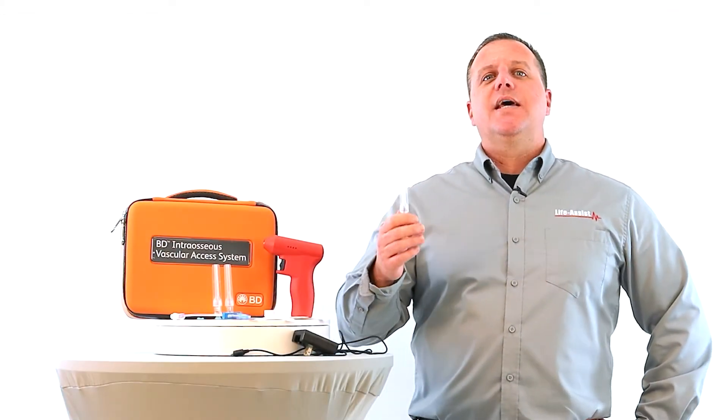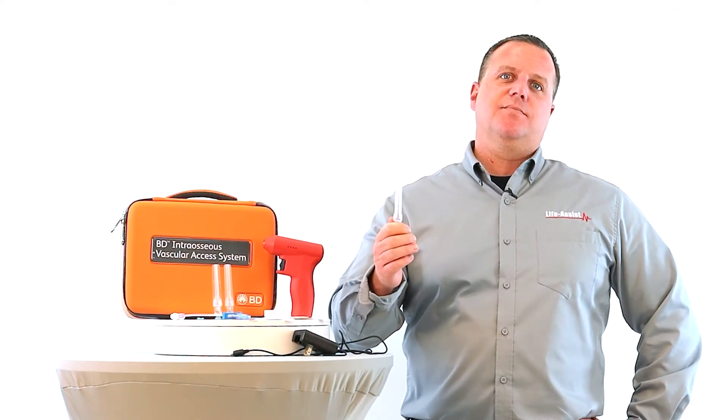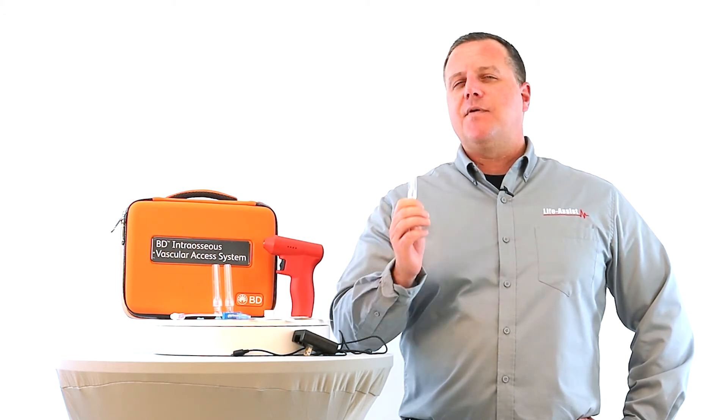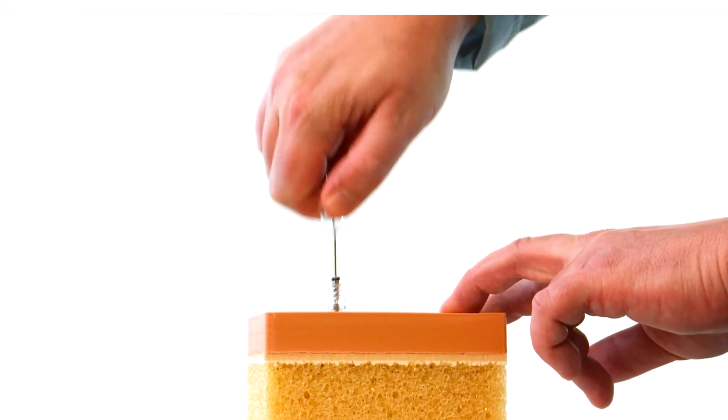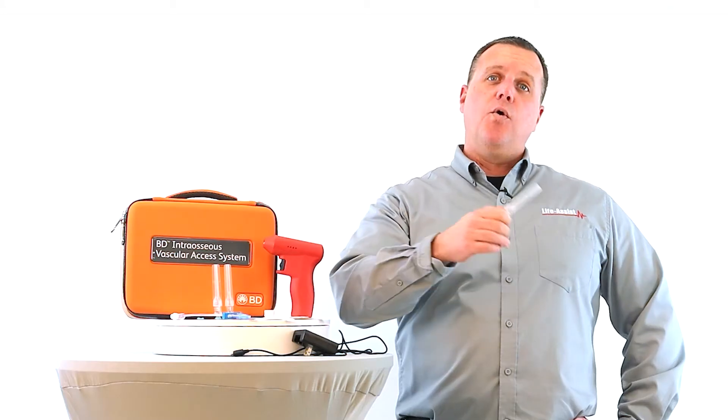The new BD I.O. drill needle set comes with what's called the needle safety system. Basically what that means is when we're removing this needle from the patient in the back of a bouncing ambulance, an automatic safety device is released protecting me or you from accidental needle sticks.